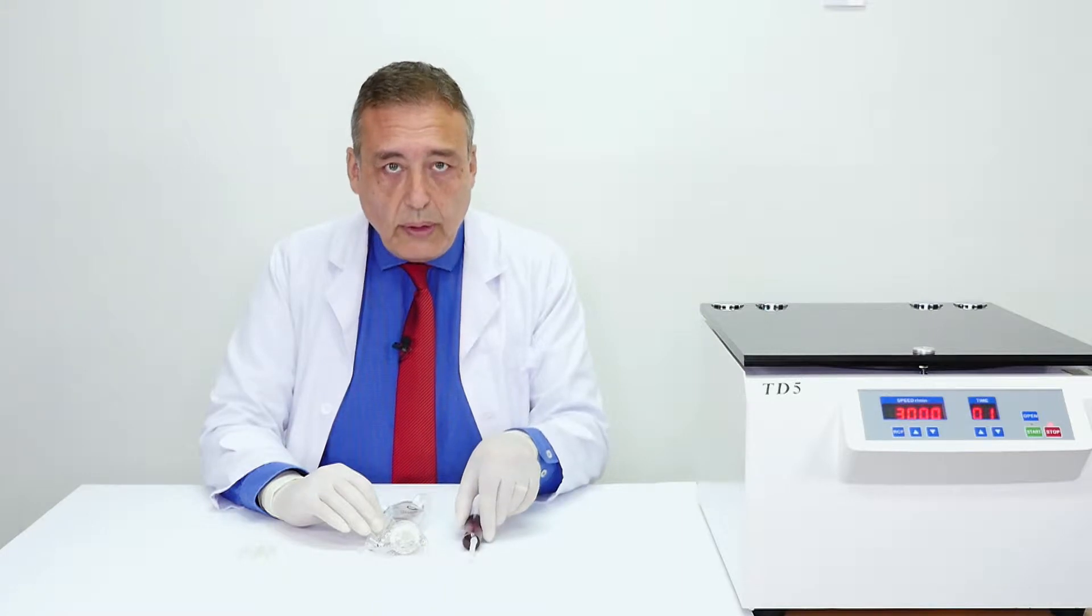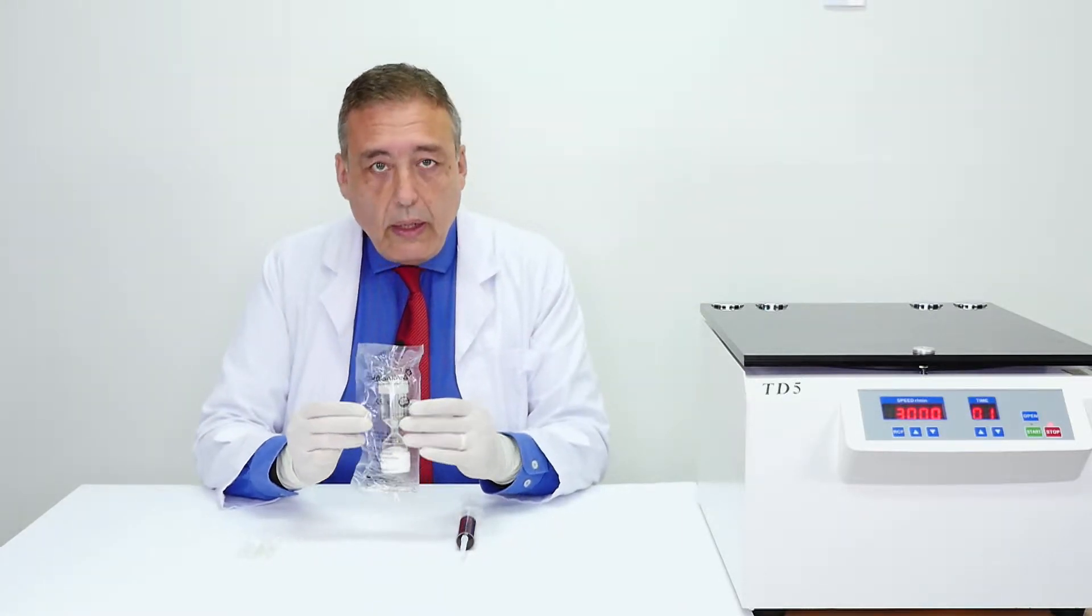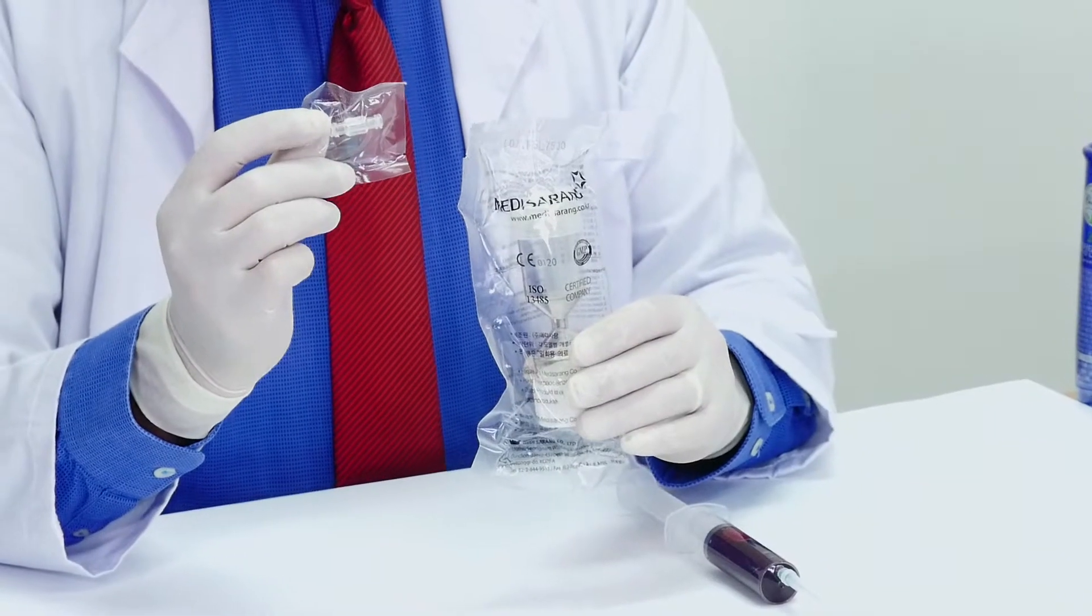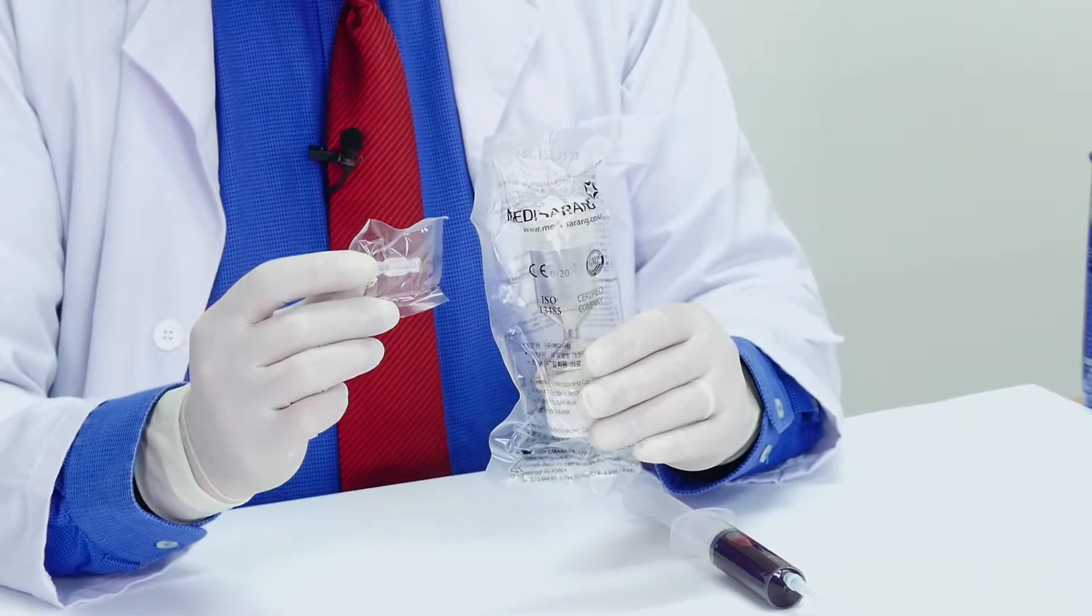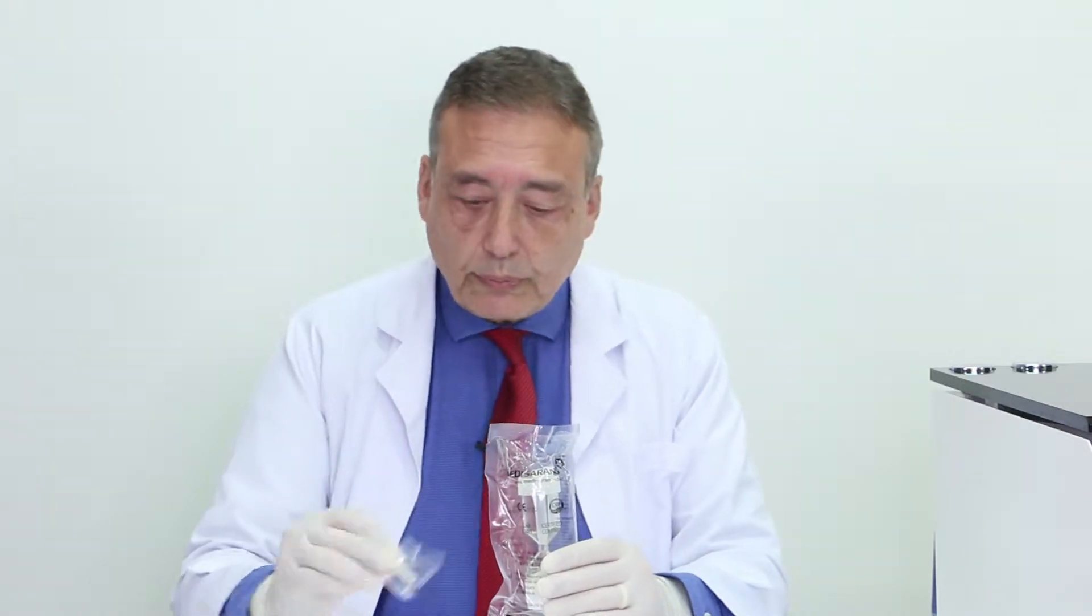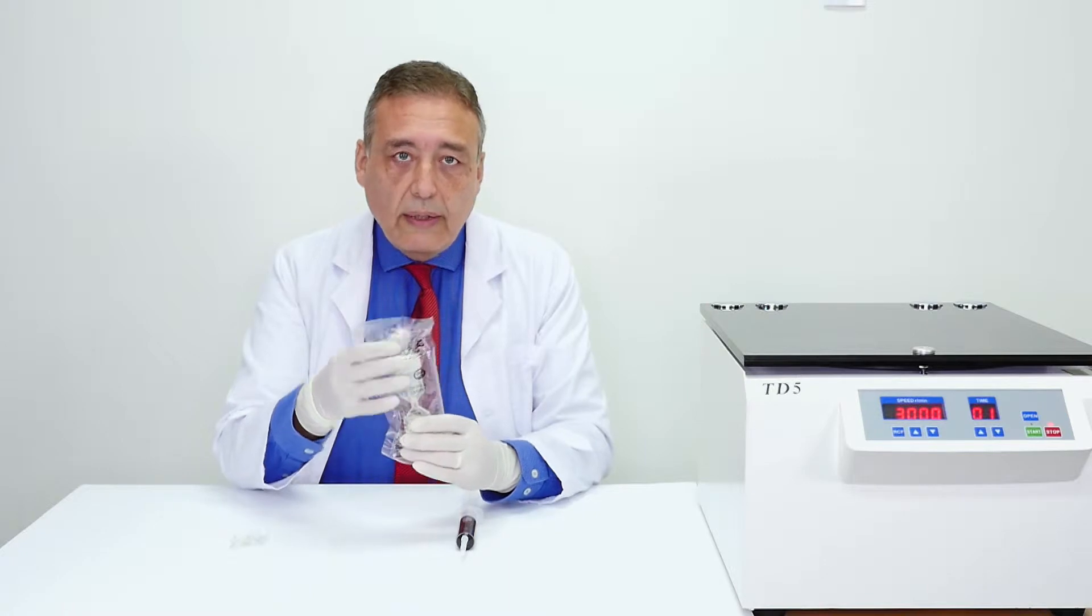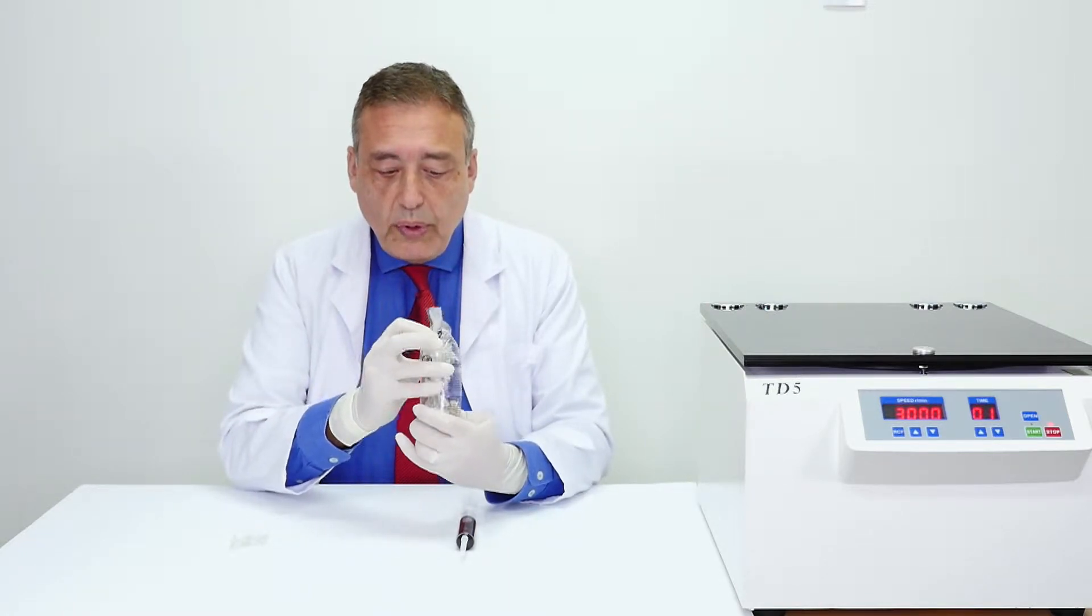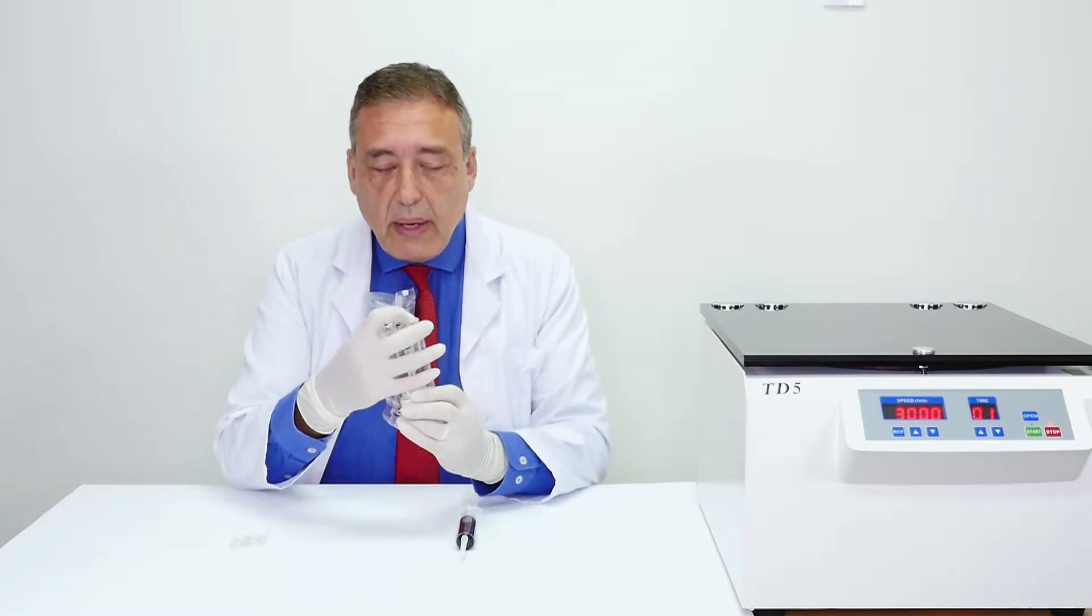Now that your syringe is filled with the patient's blood, we need to inject the blood into the kit itself. Every tube comes with a single connector tube that can be used to mix different plasmatic fractions or to mix with HA in case you are doing cosmetic medicine. The way to inject properly the blood is to do that through the plastic wrap. You will just open the lateral shaft through the plastic bag.